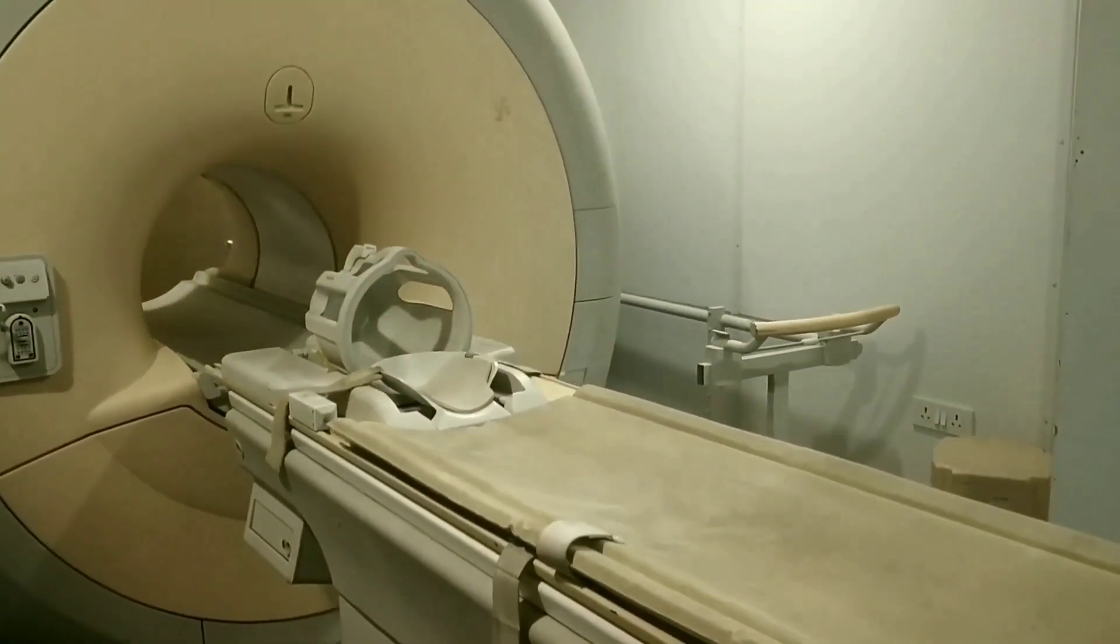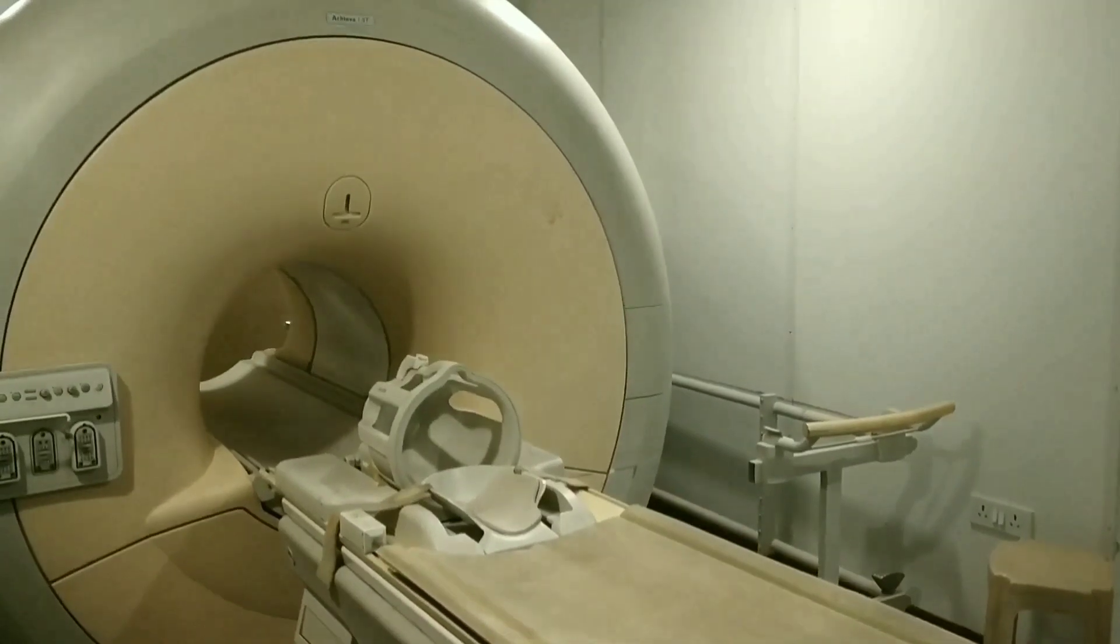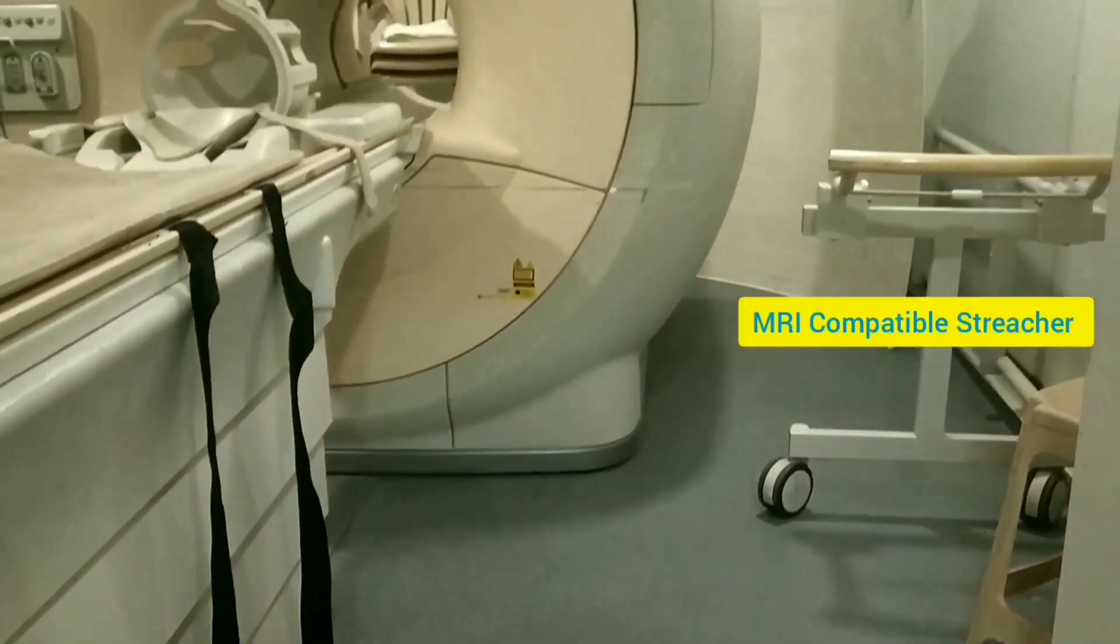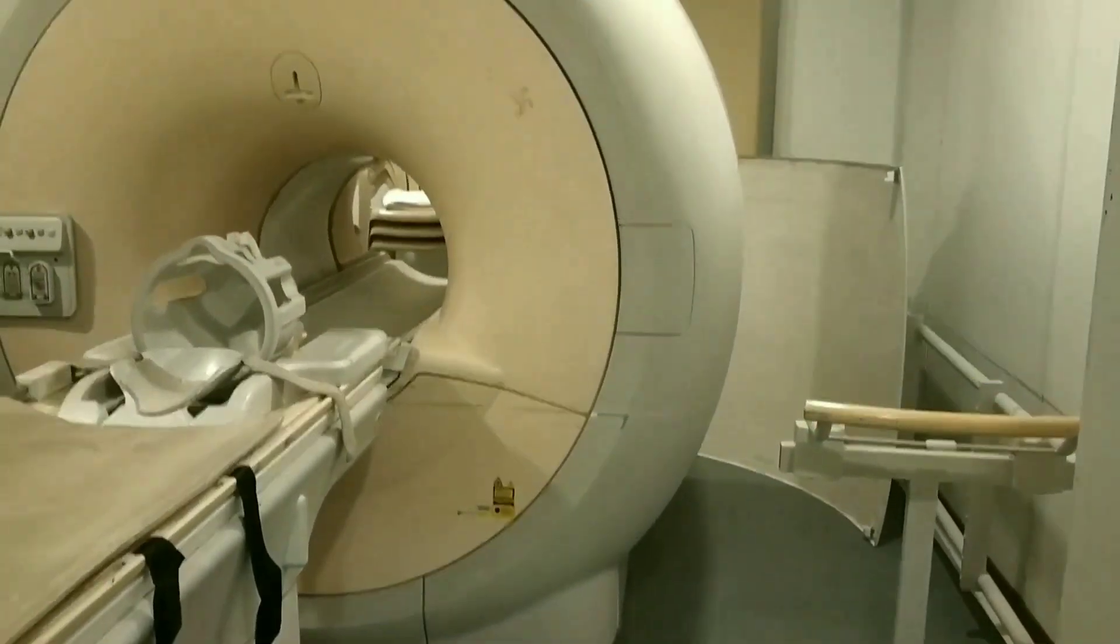So this is the whole look of an MRI room. This is the MRI compatible stretcher that you can see.